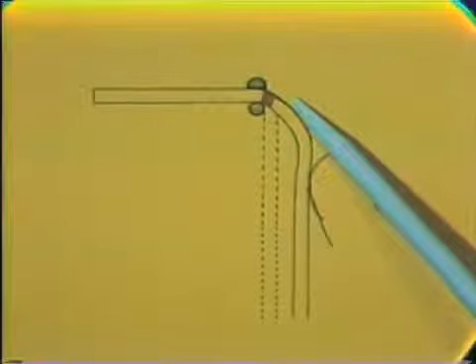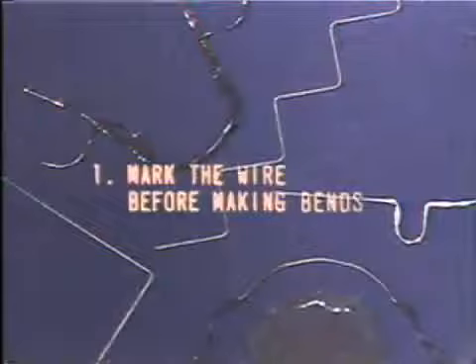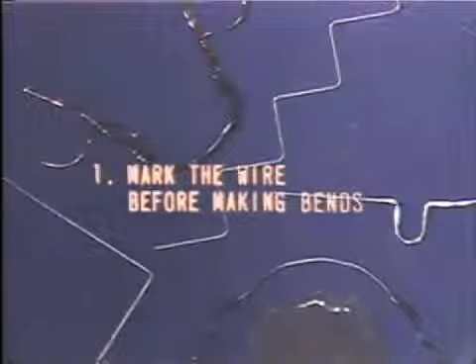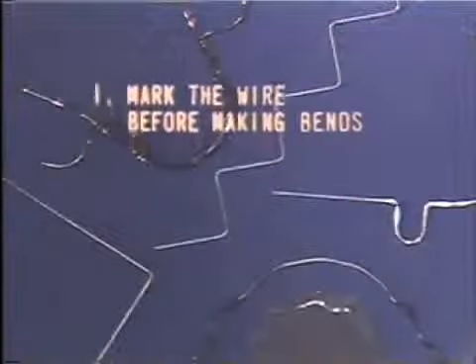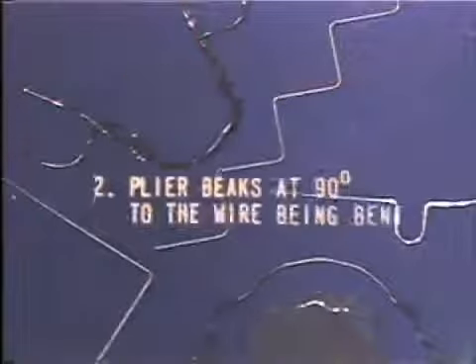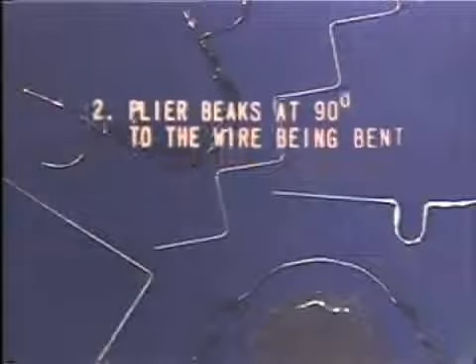In summary, the main points to remember about wire bending are, first, always mark the wire before making any bends. Second, always place the plier beaks at 90 degrees to the wire being bent.